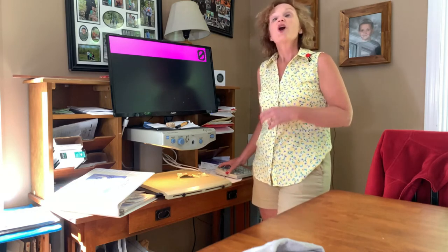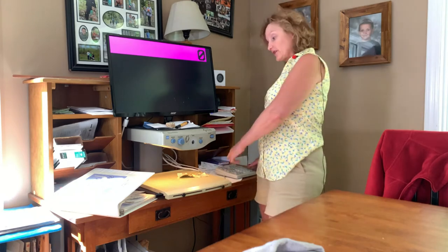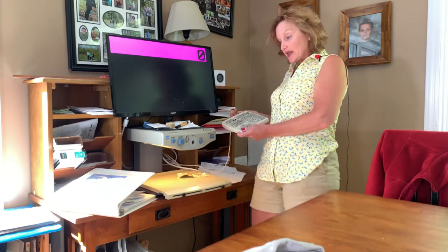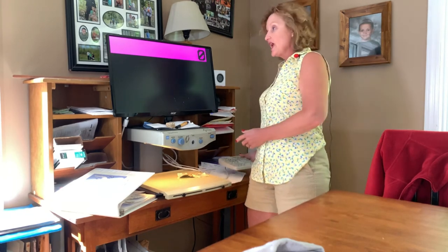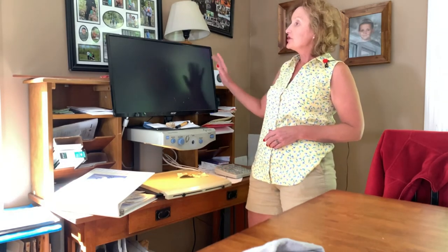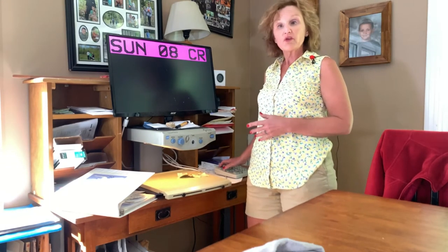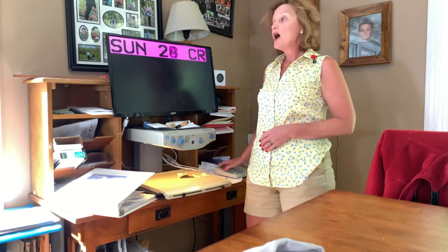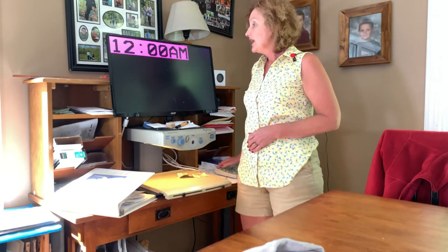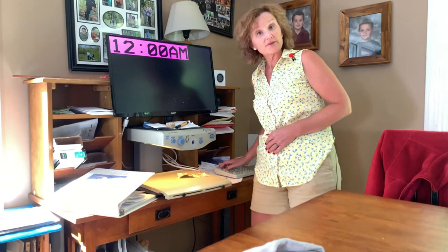You can also get add-ons for this equipment. The add-on I have plugs into the back and is a calculator or 10-key. It has two different functions: a calculator — with the image showing up on screen — and the ability to program in the date and time. I don't use this often, but those options are available.